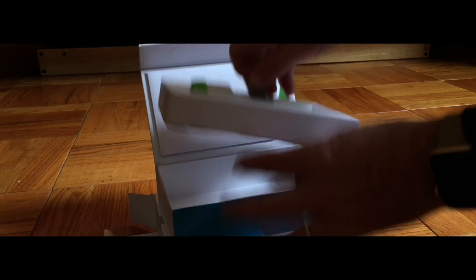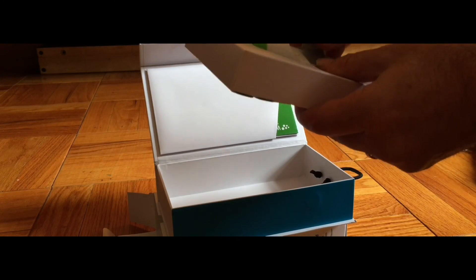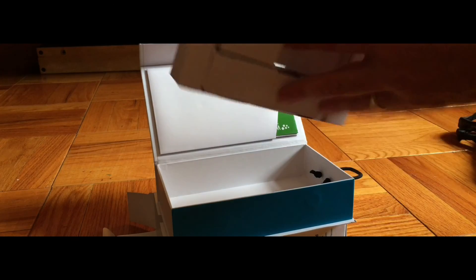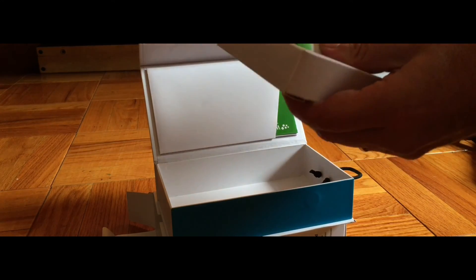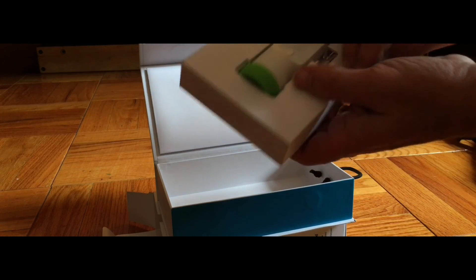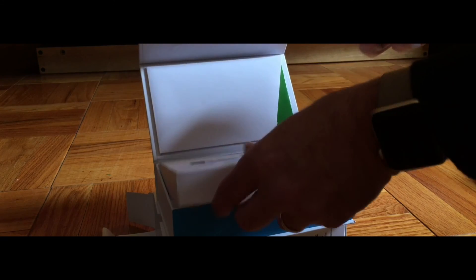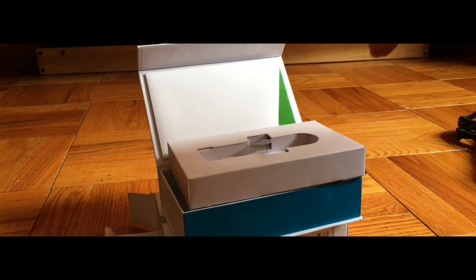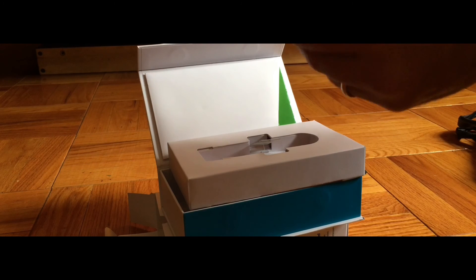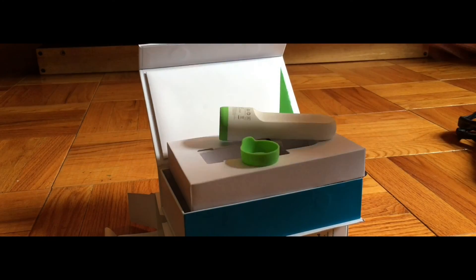Apple was selling this for about $100. It's made by Withings, which makes other Wi-Fi devices. For many years I had a scale that is Wi-Fi connected, I have a Withings account, my family does too, and the scale knows which member is on it and all the data goes to each of our accounts. I wanted to get a thermometer because I had some flex spending money to use by end of year, and I like Withings — it works well.